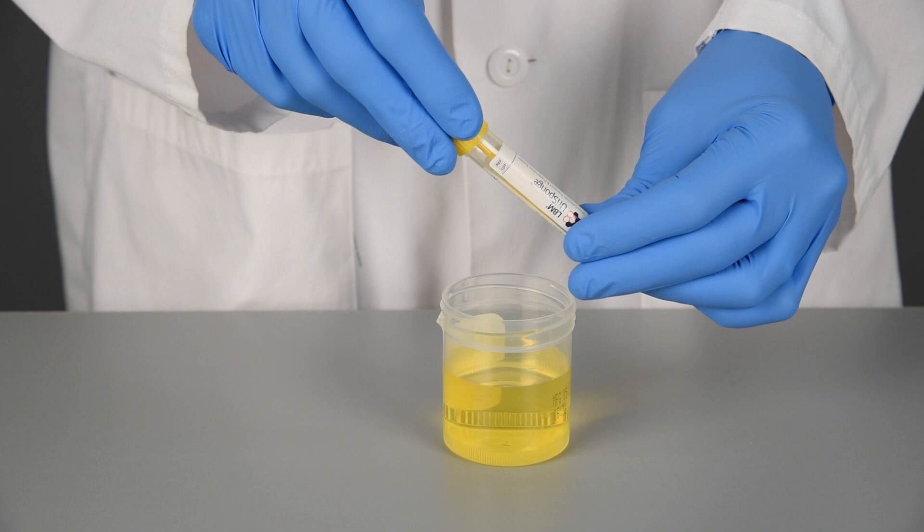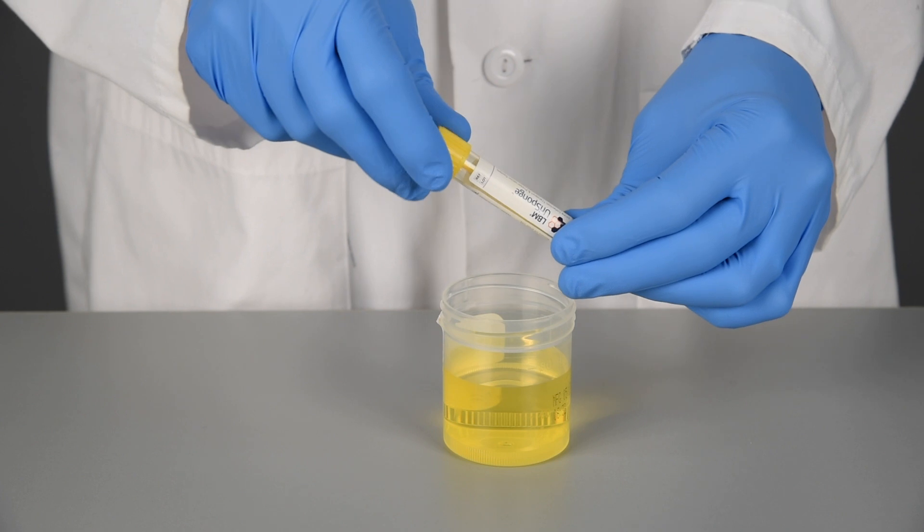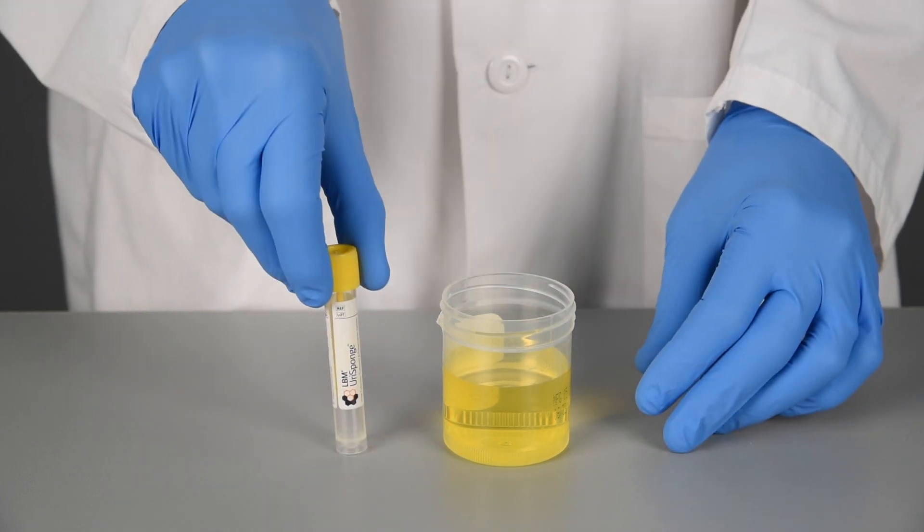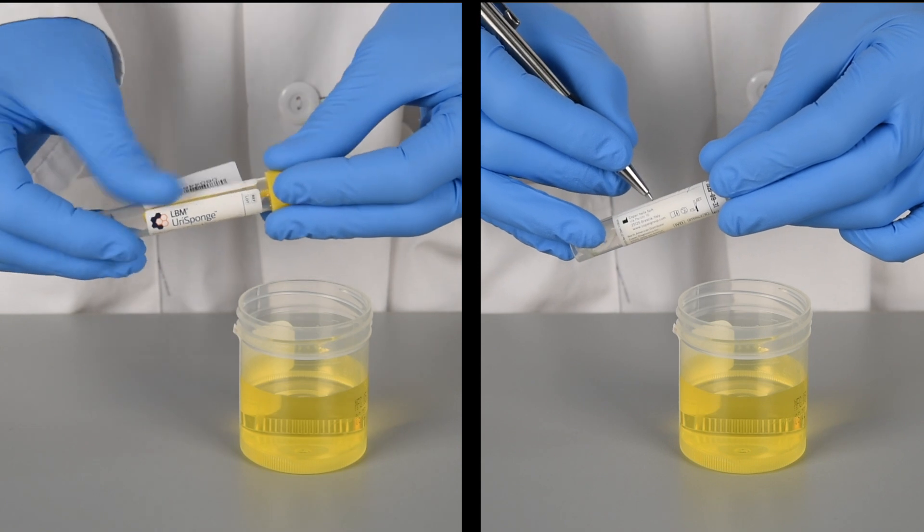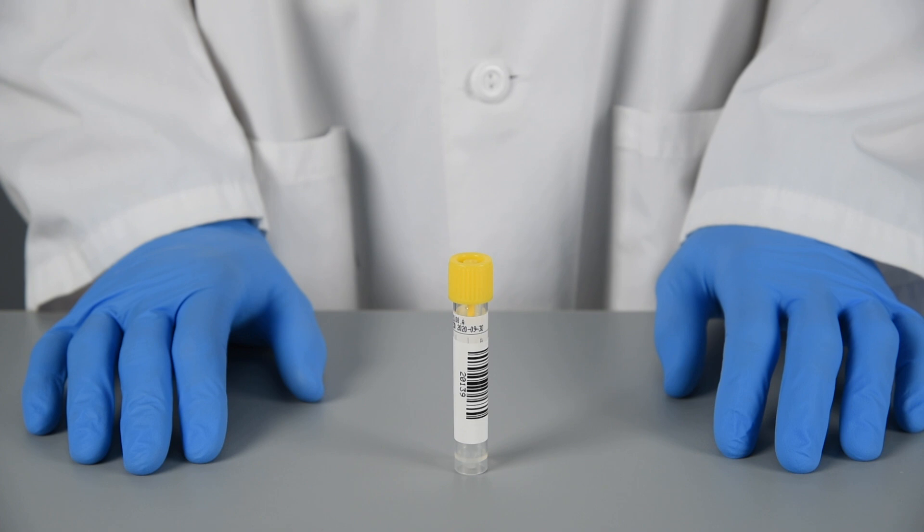Screw the cap to securely close the container. Label and transport UriSponge specimens in accordance with institutional requirements. Immediately transfer the UriSponge specimen to the laboratory, preferably within two hours of collection.